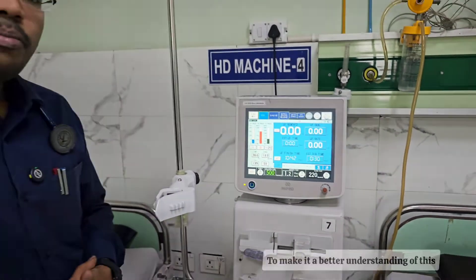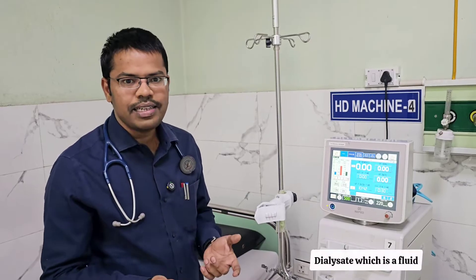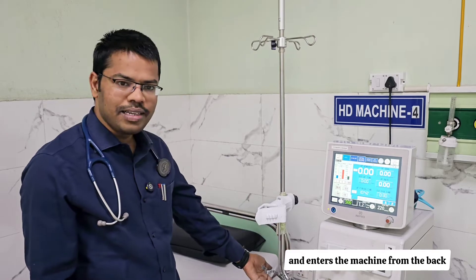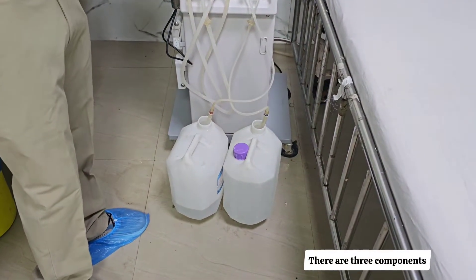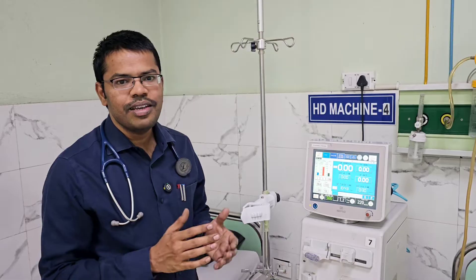To better understand conductivity, you should know the principles of hemodialysis. There is a dialyzer, and into it comes dialysate — a fluid made up of three components: water, electrolytes, and bicarbonate. Water comes from the overhead tank and enters the machine from the back. There are two cans: one is the electrolyte can (also called Part A), and the other is the bicarbonate can (Part B).